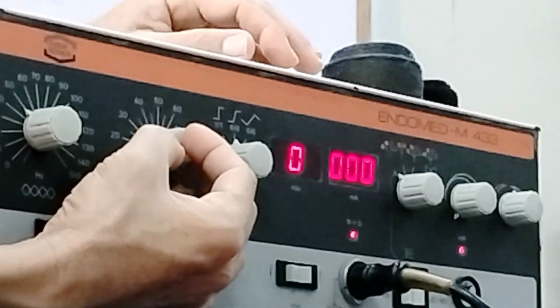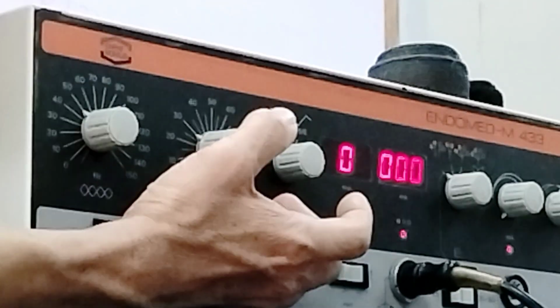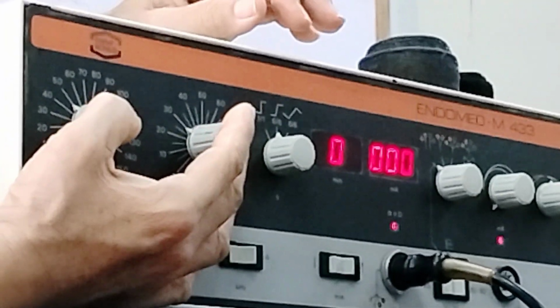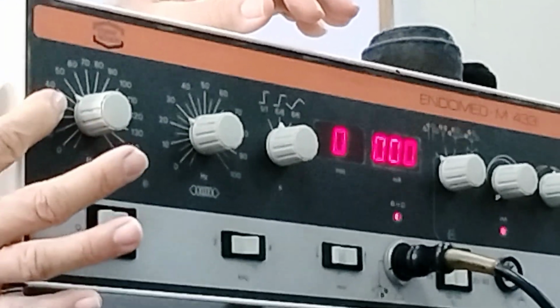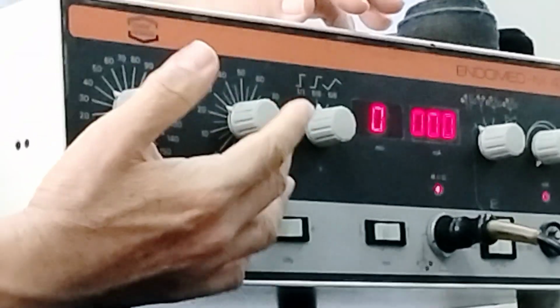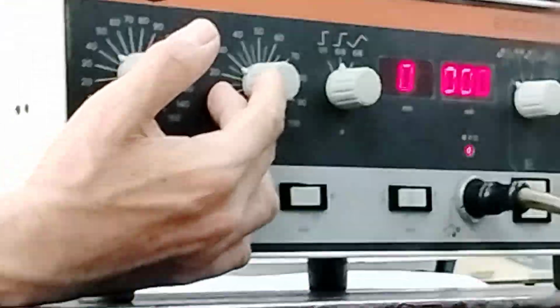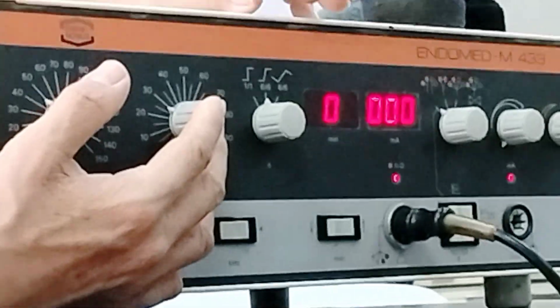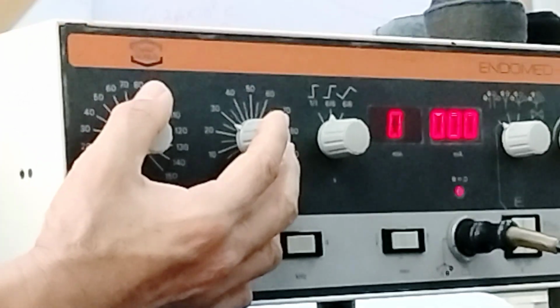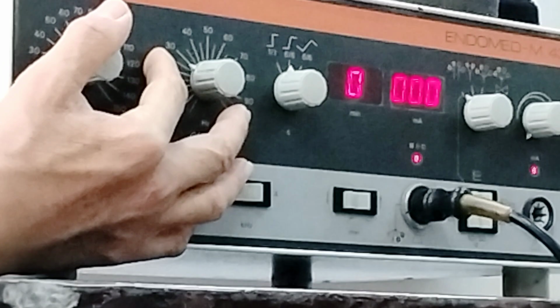So that if ever, let's say, you place this to 30, it means in this setting your base frequency or your starting frequency is 50, then it will further move to other frequencies reaching 80 Hz. You add it: it starts at 50, 51, 52, 53, 54 until it reaches 80.